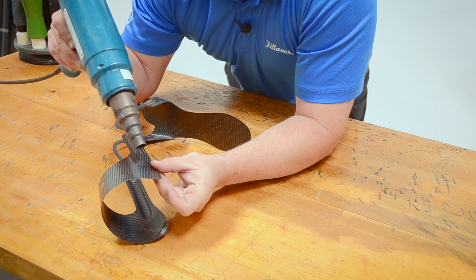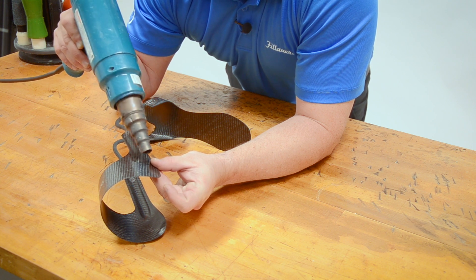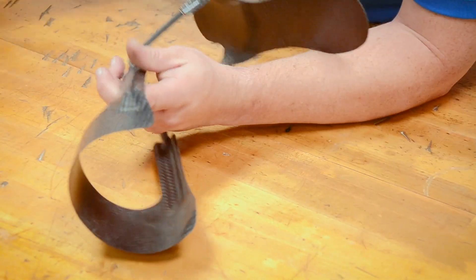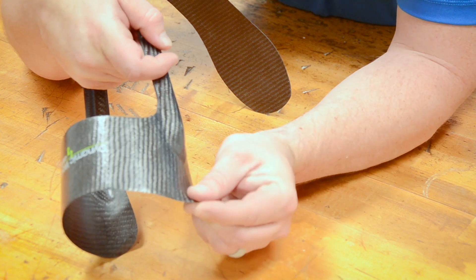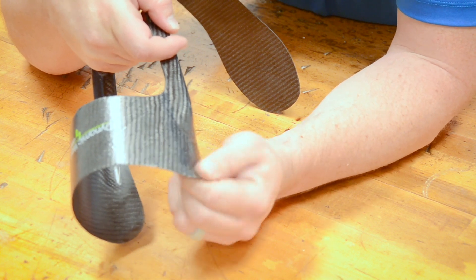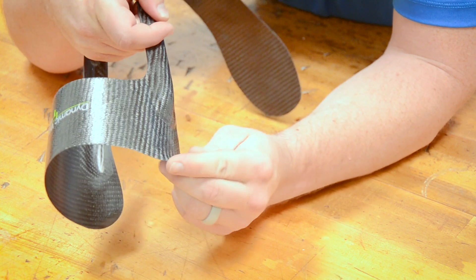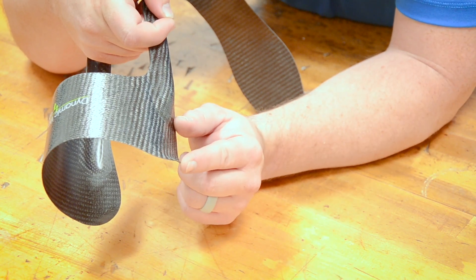I'm starting to be able to put a little bit of a flare on this. Let's say that patient's having a little bit of trouble and I just want to move that out. I can bring it back in, get a little heat on that side, and now you can see I can put a little flare in there. Be pretty careful not to press on it and cause the fibers to break apart, so I'm going to try to keep it squeezed back together as we're working on it.